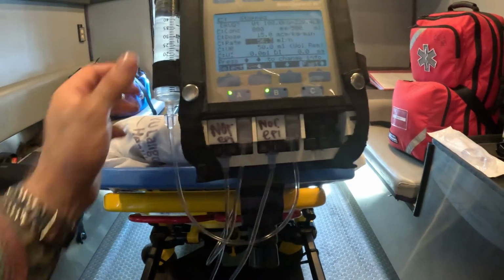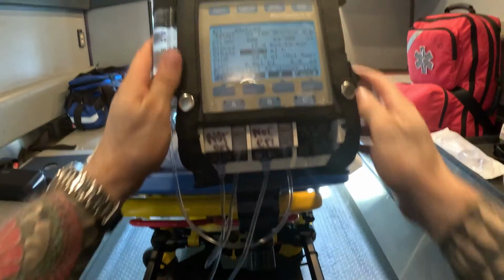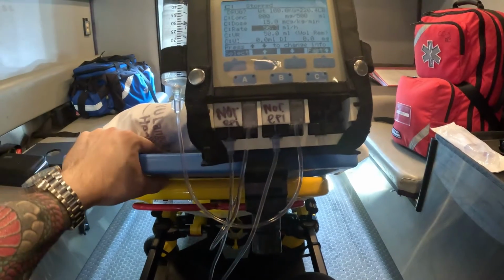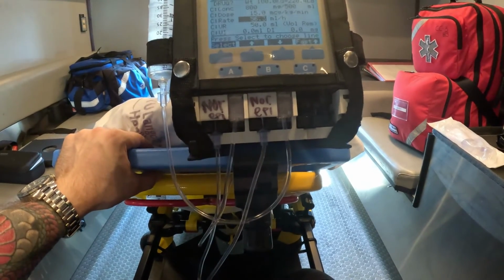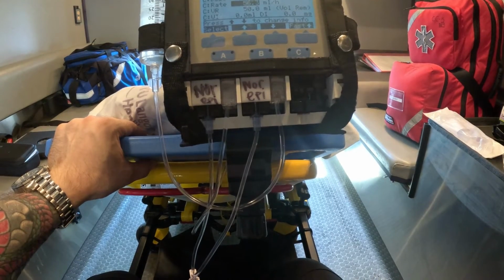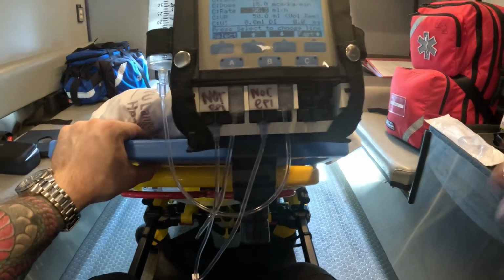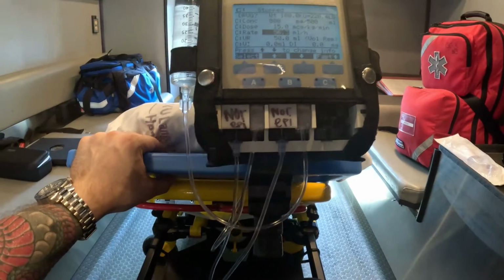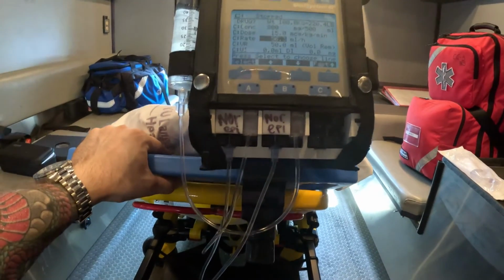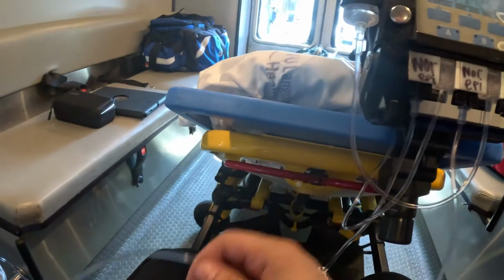So definitely employ the syringes. You could put bilateral syringes, you could put another one if you need to. I have a setup showing you how to do this. One other important thing that I want to show you, and I showed it in my video, is administration of the vasopressor. If you come to the bedside and they just placed the central line, which ports do you employ?